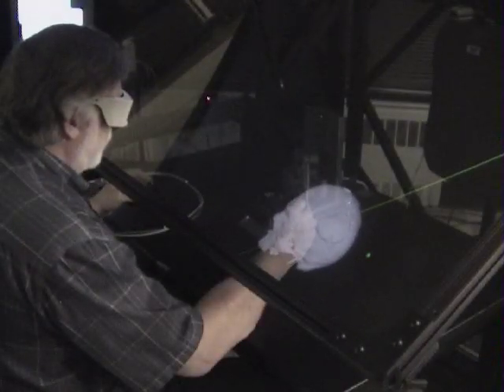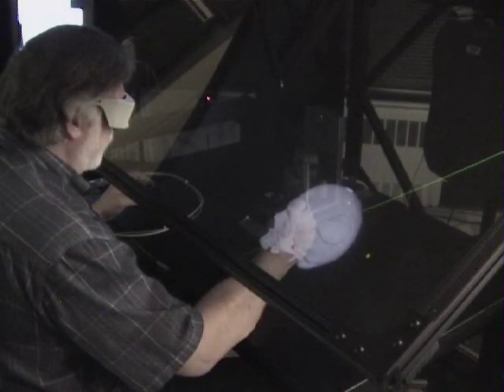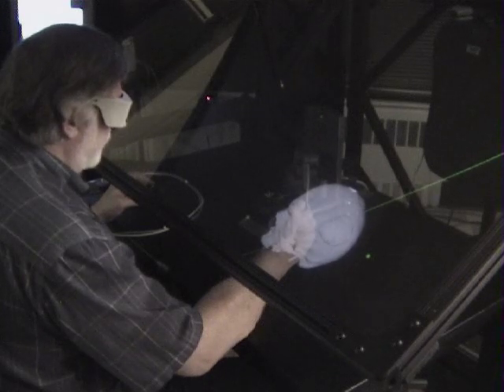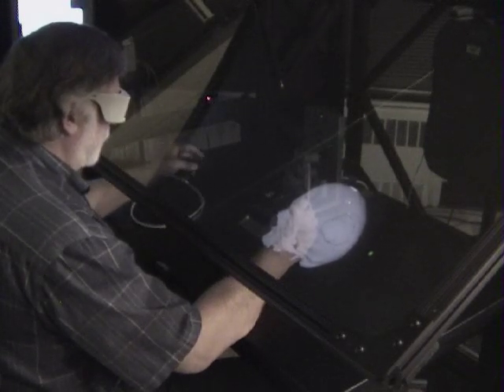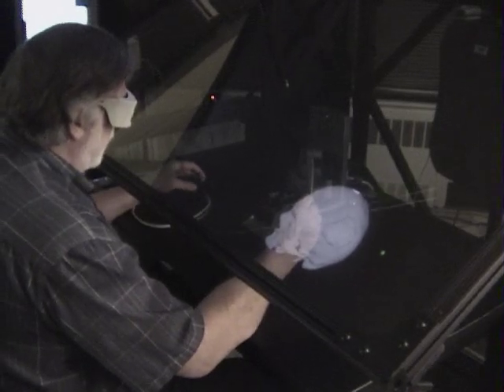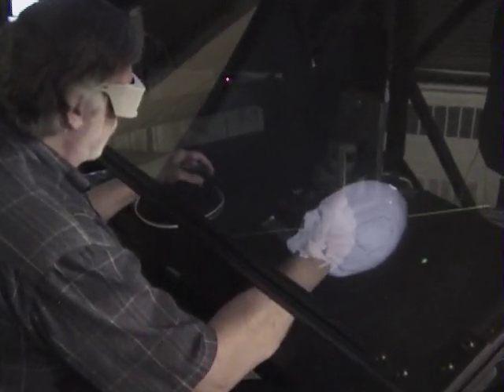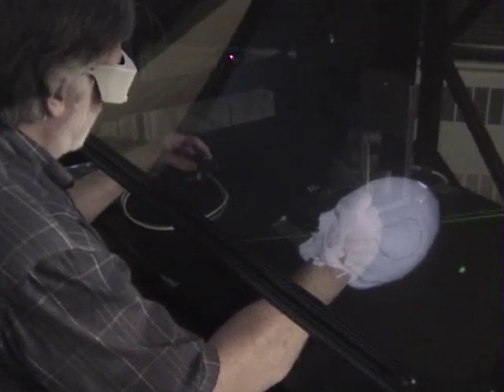We've spent some time going back and forth between the various tools, and now I have what I find to be an acceptably smooth, well-formed implant. The next step is to remove it from the defect.